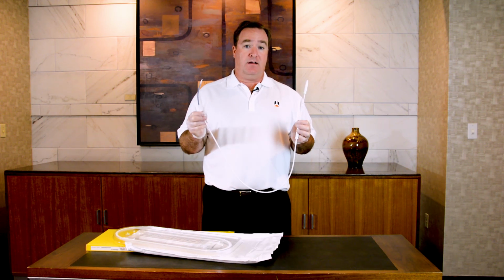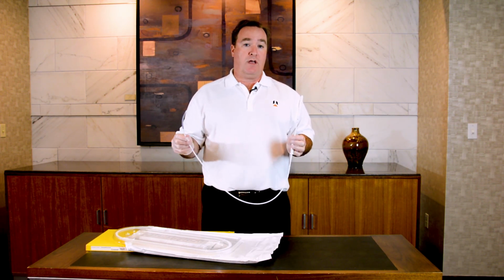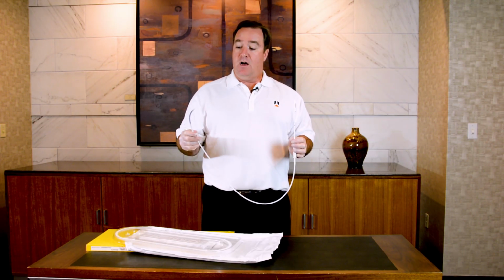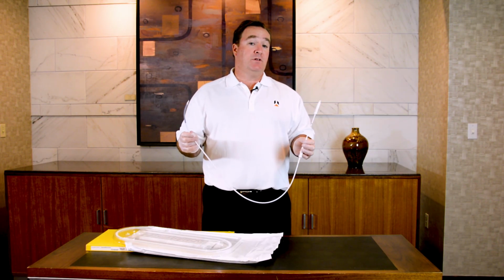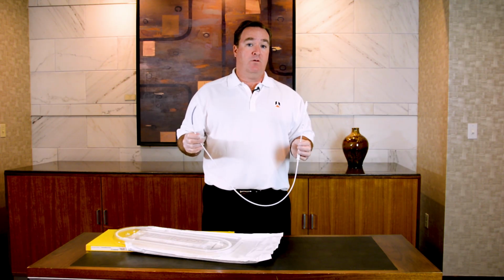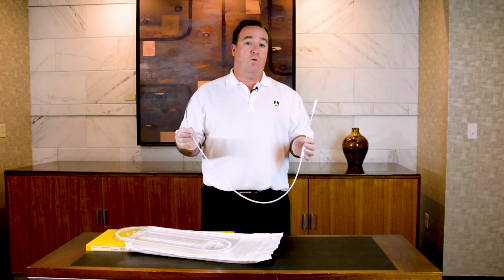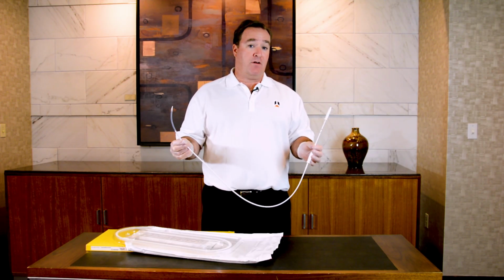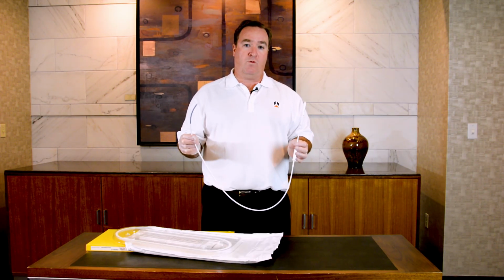You can then insert the catheter, backload it over a guide wire, or you can send it down through a rigid scope under direct visualization. Once you have the stent in position, there are two ways to properly deploy it. The first is under direct visualization, where you can have a scope either side by side to the stent catheter, or the 10mm catheters will actually go through the working channel of a therapeutic bronchoscope, and you can visualize directly when the catheter comes through the working channel.